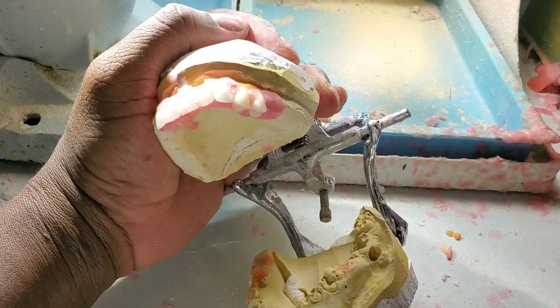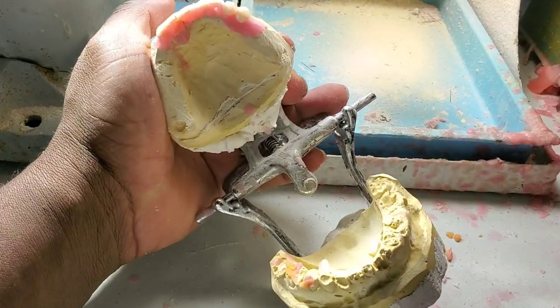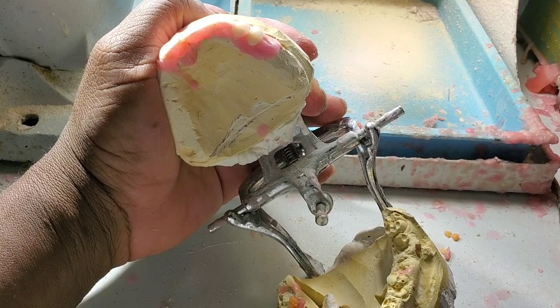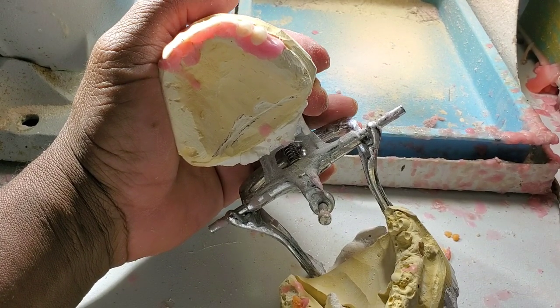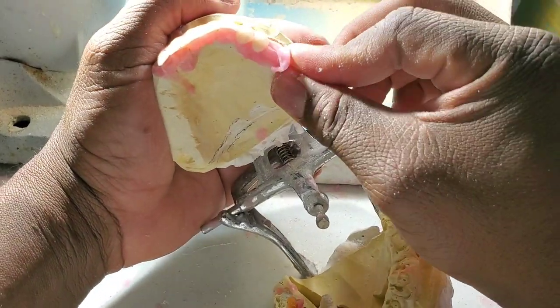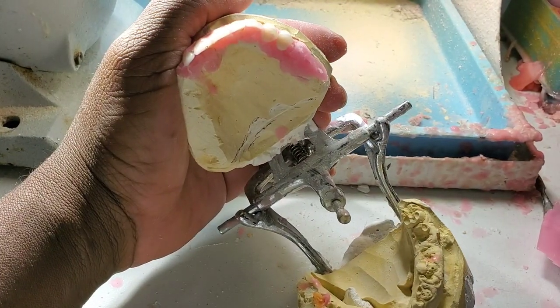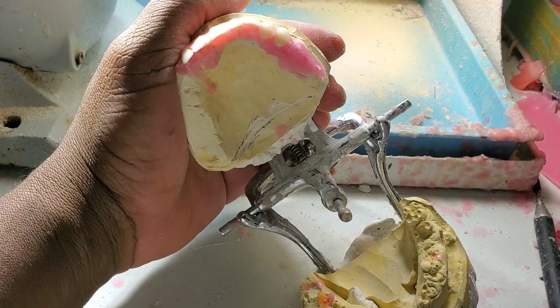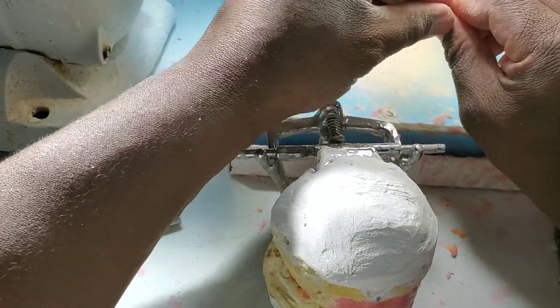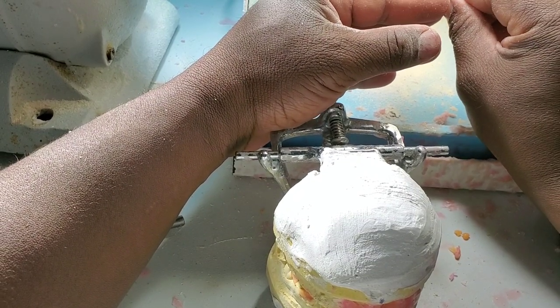I'm putting every tooth on the bone, not under the bone. If you put it under the bone you're going to create a gummy-type denture. I put it on the bone, not under. So I have to grind on the teeth constantly so that you'll be able to put the teeth on the bone.